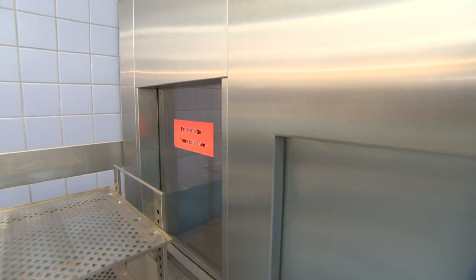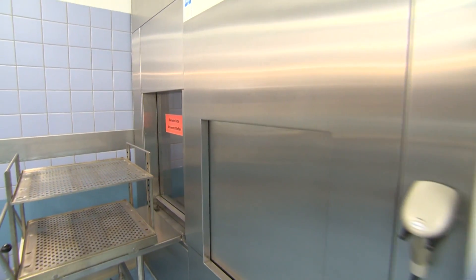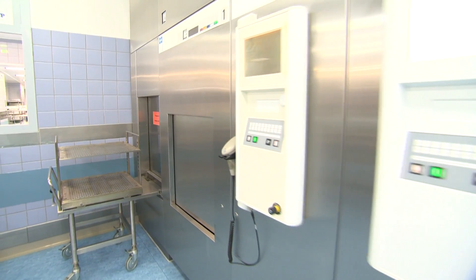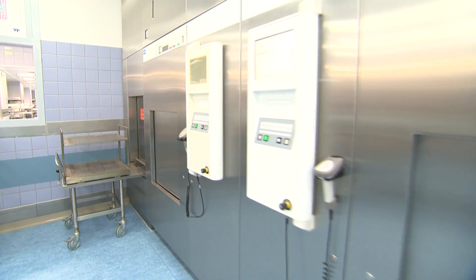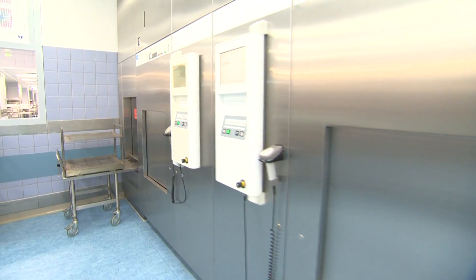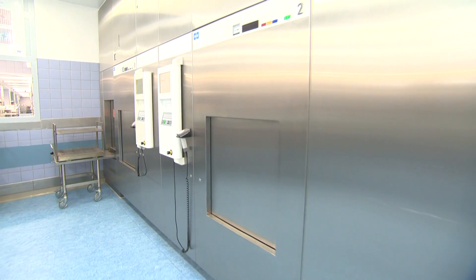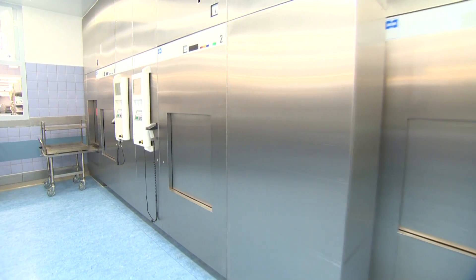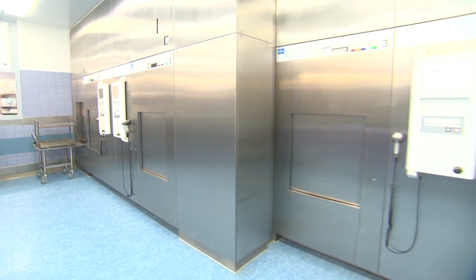At the end of the preparation process is sterilization. Steam sterilization remains the most effective method of freeing heat-resistant instruments from germs which are capable of survival, leaving no residues or irreversibly inactivating them.